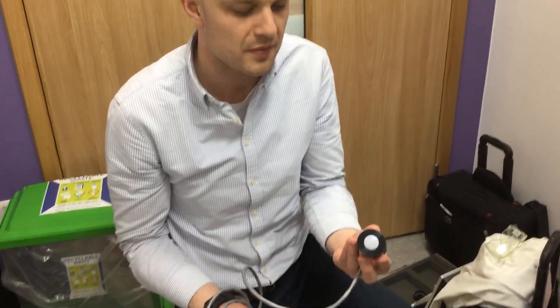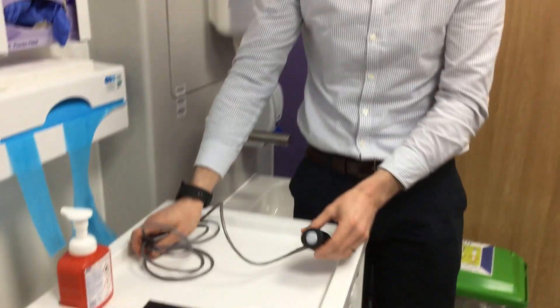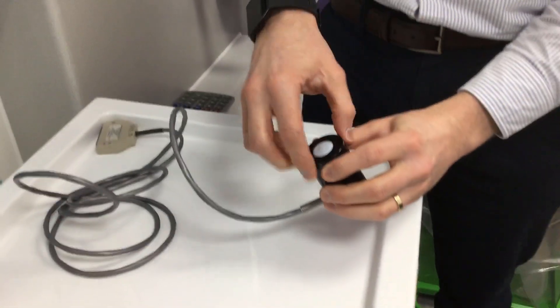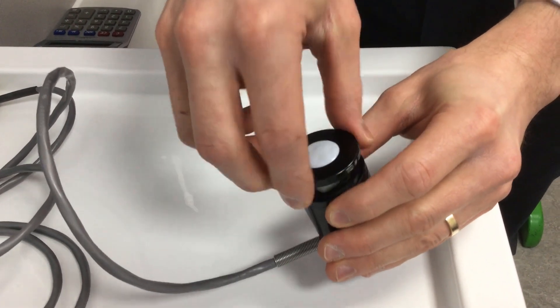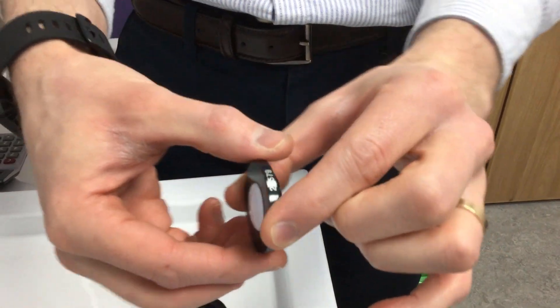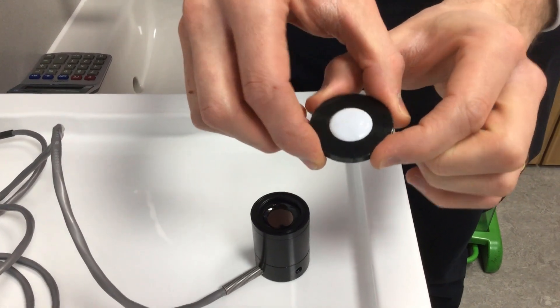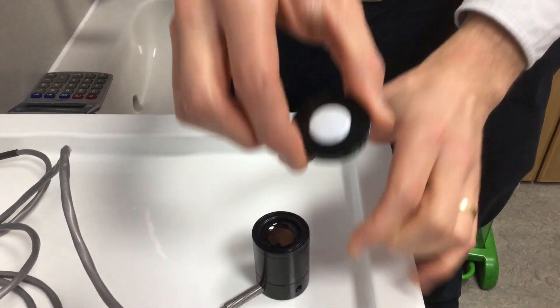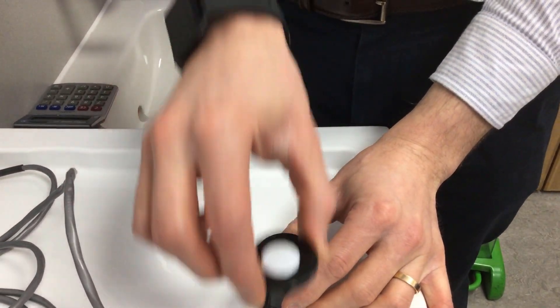This is the common type of detector with the IL-1400. It comes in several different parts. On the top you have a cosine diffuser — this is the cosine diffuser here. This one is Teflon, and these are the ones commonly available now. In the past you also had quartz diffusers, although the quartz ones don't have as good an angular response as the Teflon diffuser ones do.